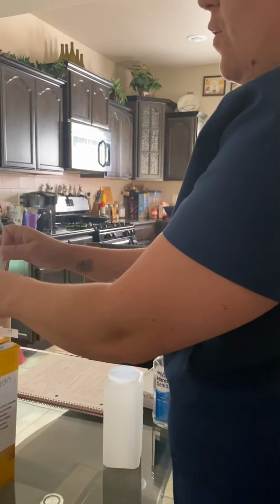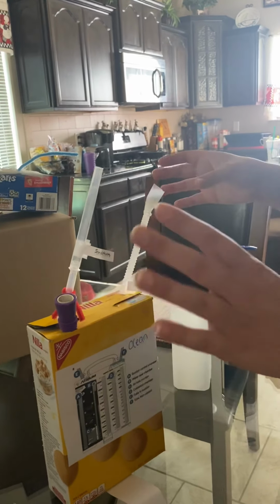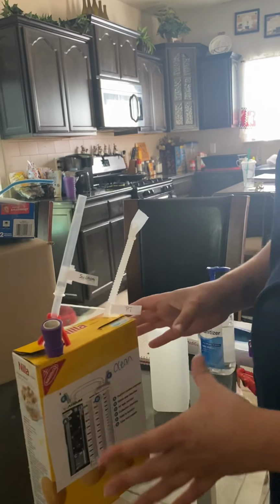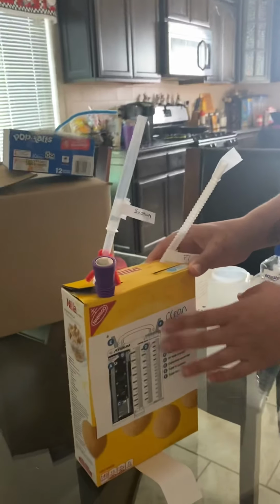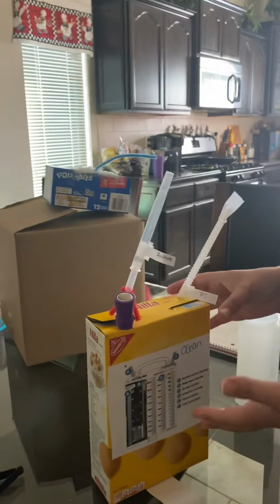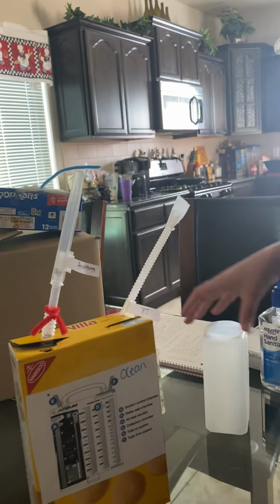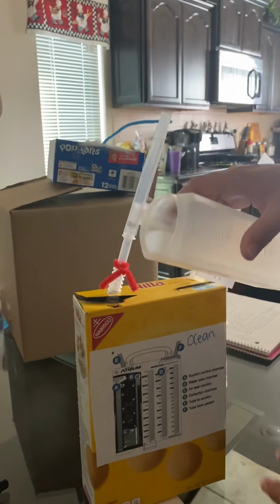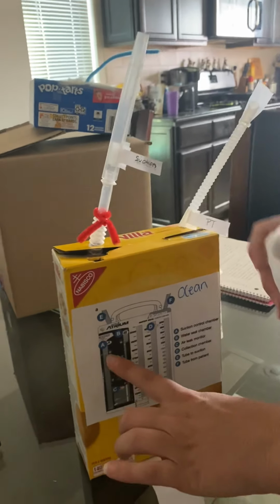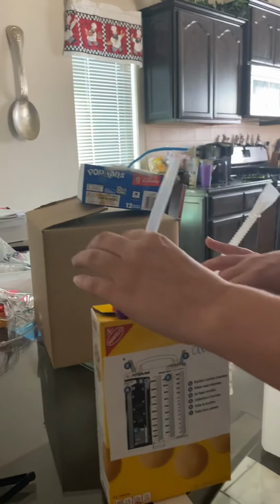The patient is hooked up to a system already, so you're going to want to get another system ready. For this video, we're going to pretend this is my new system. It's the Ocean. You're going to want to remove the system from the blue packaging. You're going to want to make sure that it's the Ocean because that's what the patient was using before, so you want to replace it with the same one. You're going to remove the stopper so you can fill chamber A with 20 centimeters of water. So you're going to want it to go up to the 20 centimeter line. You're going to replace the cap.